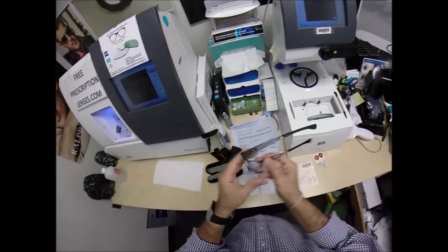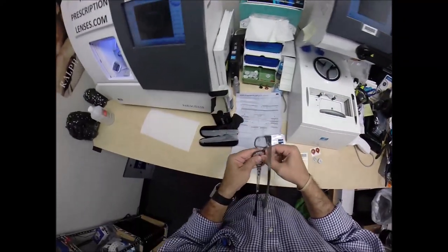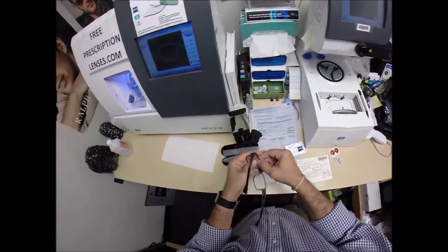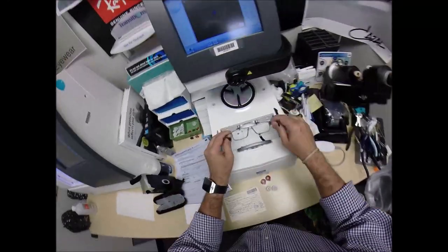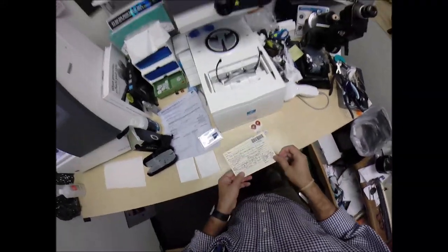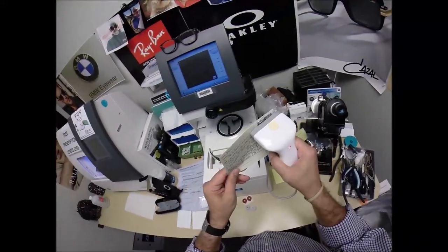So I'm going to pop out your original demo lenses. One of which says Oakley. And of course, you're going to receive all the manufacturer's original packaging as they send it to me. I'm going to put your frame into the tracing element of my blocker. Program the shape into the computer.